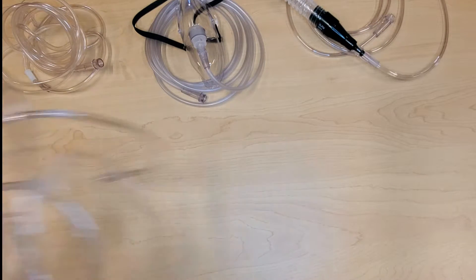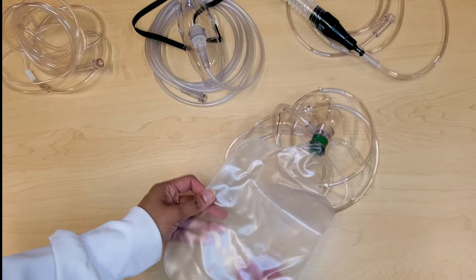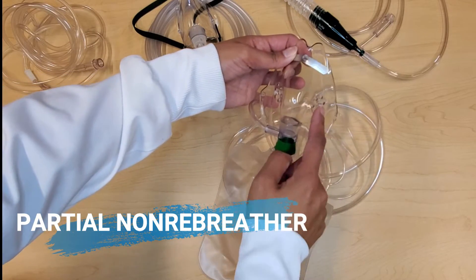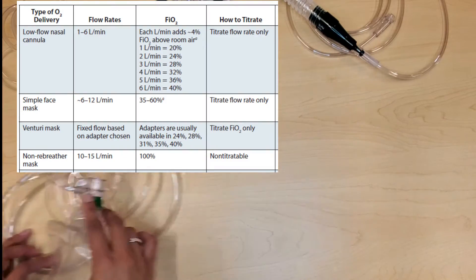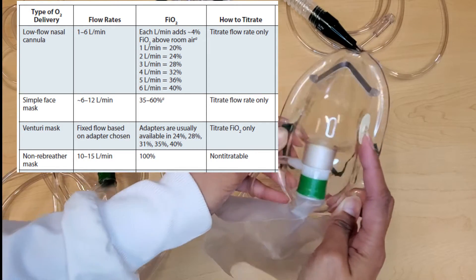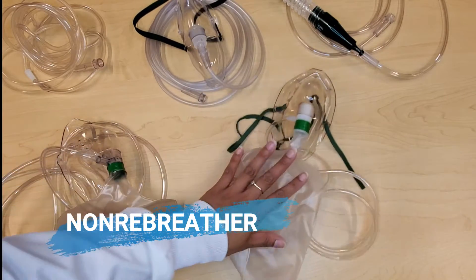Now let's say our patient still needed more than what the venturi mask could give, which was 60% FiO2. We now switch to a non-rebreather mask. We have partial non-rebreathers which give 50 to 70% FiO2, and full non-rebreather masks which give 95 to 100% FiO2. The difference between the two is that the full non-rebreathers have covered valves. These masks must be set at 10 to 15 liters of oxygen.